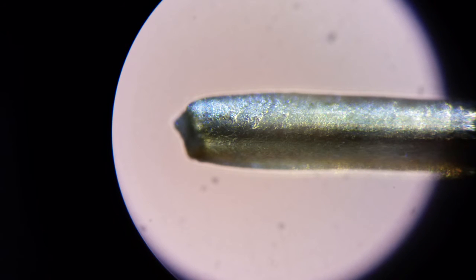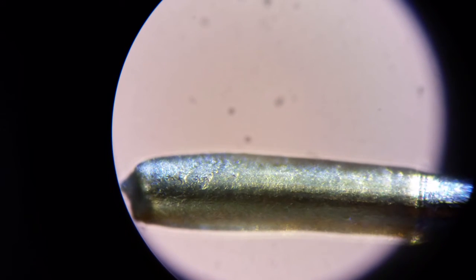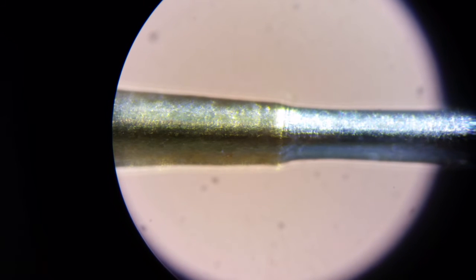So I assume the sensors have a limited lifespan. I'm sure they put more on here than we need for our week that they claim. But clearly you can see where some of this has worn off. I'm guessing that's what's going on there.